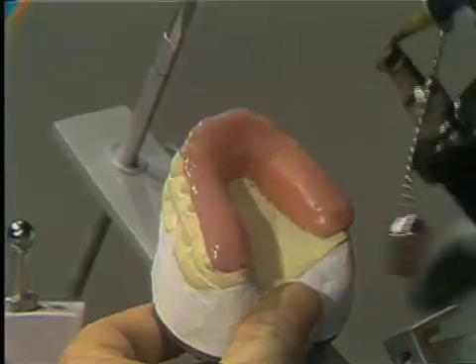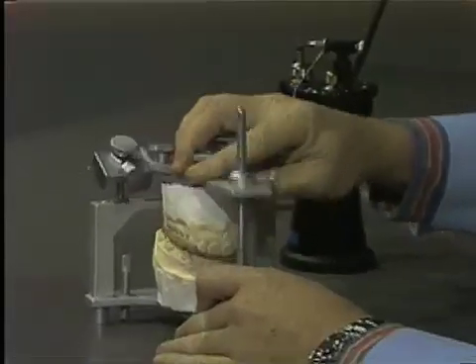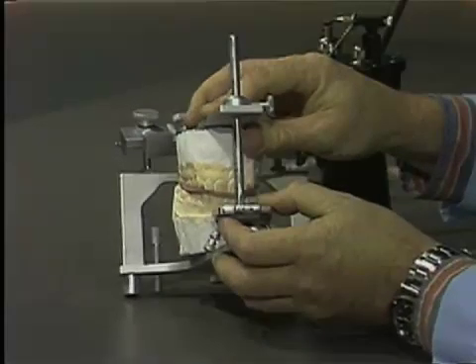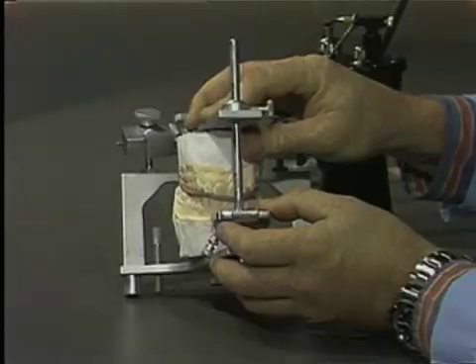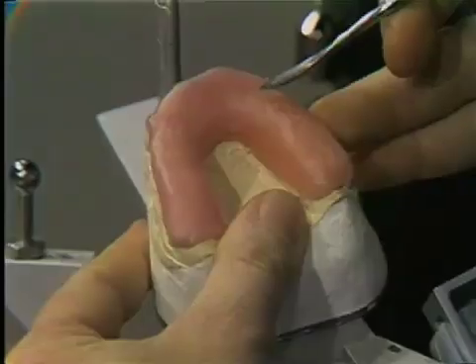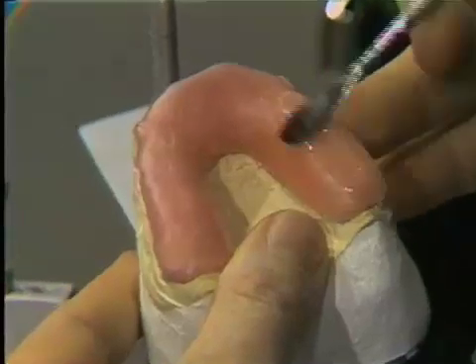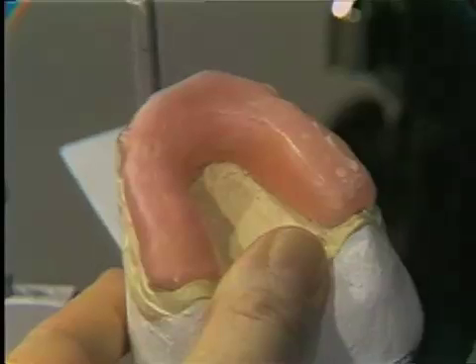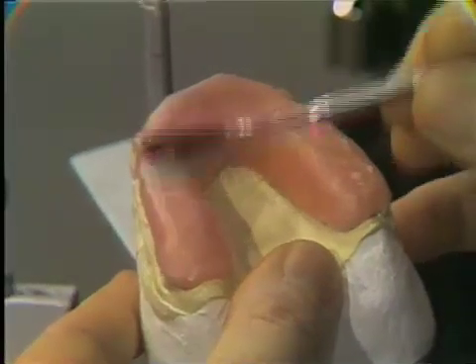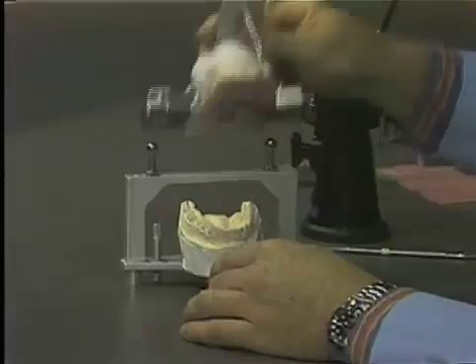Now we have to reproduce this occlusal stability in our wax. First, gently heat all the occlusal surface. Then return to the articulator and tap down till we have contact of the incisal pin. This automatically gives us the correct interocclusal clearance. The next step is to get rid of the indentations we have created — gently warm a plastic instrument and smooth out these indentations. Now return to the articulator and once more check that we have even contact throughout the arch.